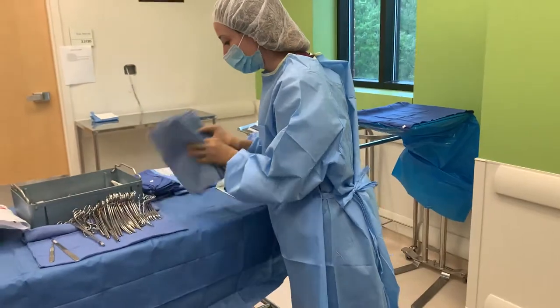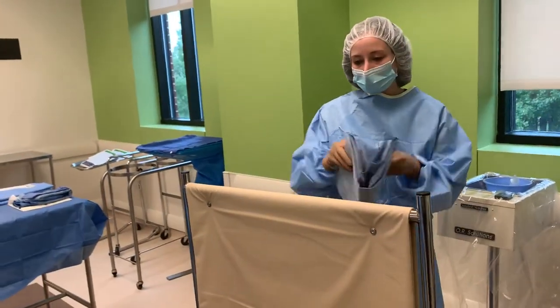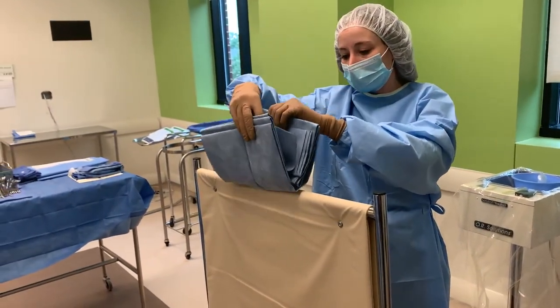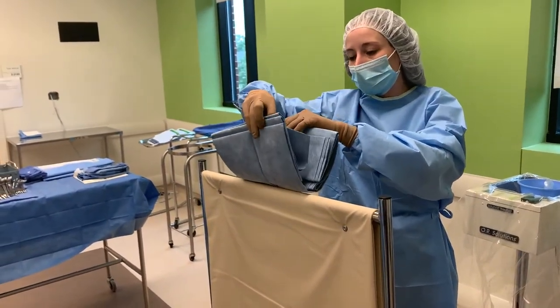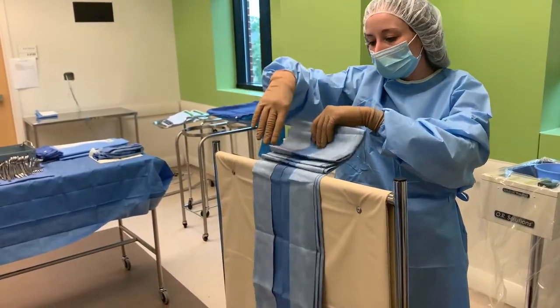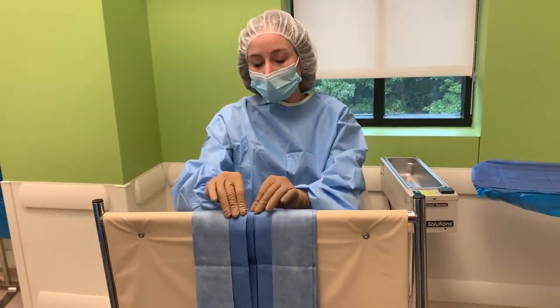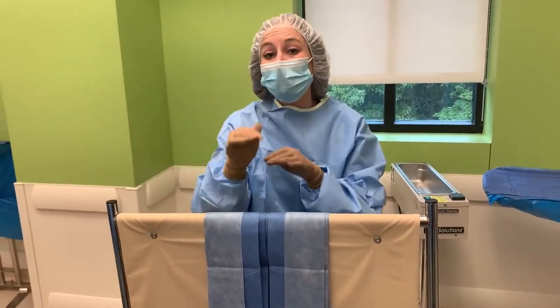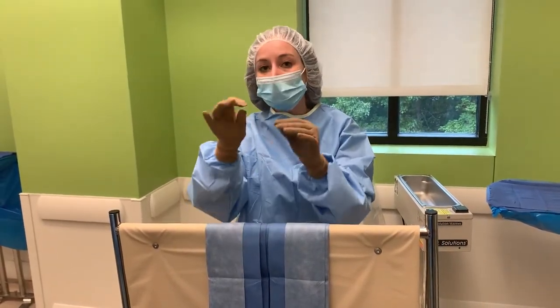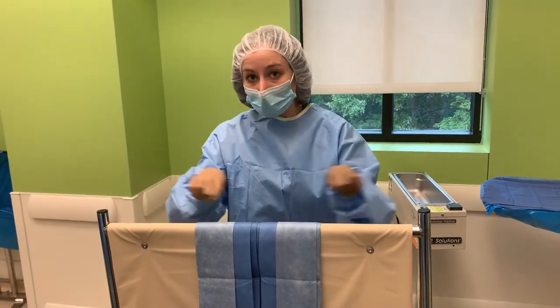Pick up the drape and find the spine of the drape. Set the spine directly on top of the lead screen, hold it in place, and let go of each side — but make sure it doesn't fall off. Don't just let go because it will topple over. Carefully let each side go, and notice you don't move your hands below the tabletop level of the lead screen.